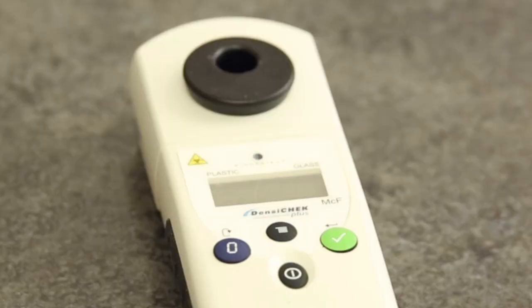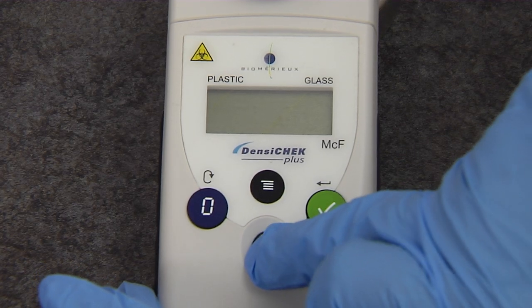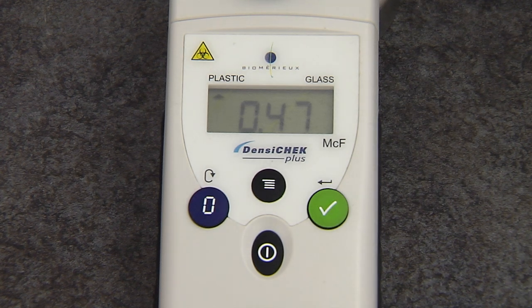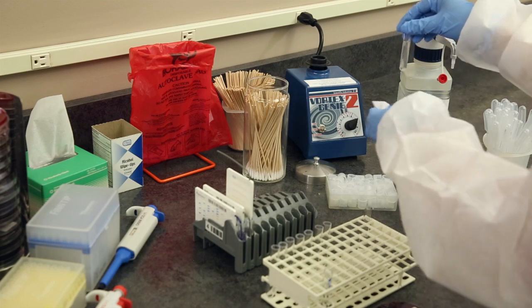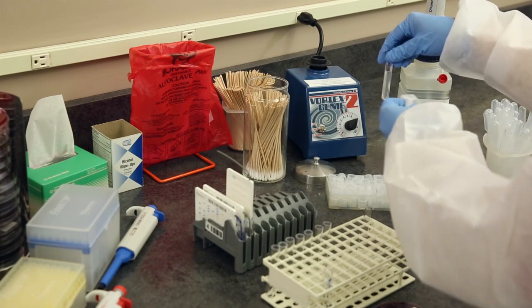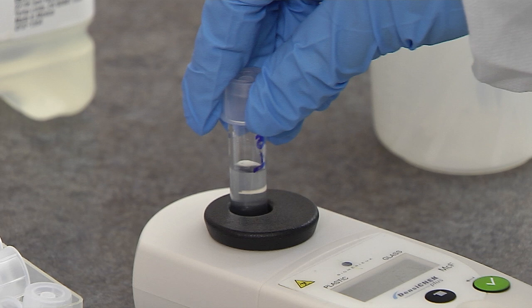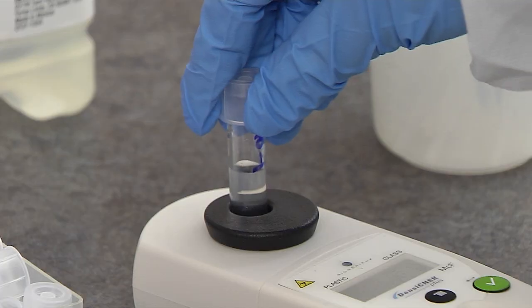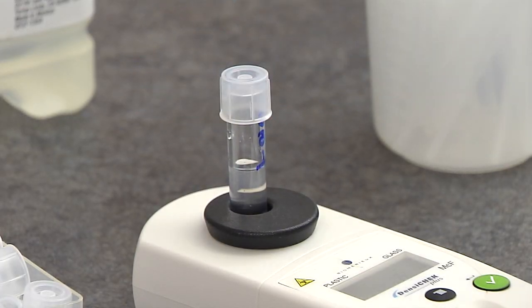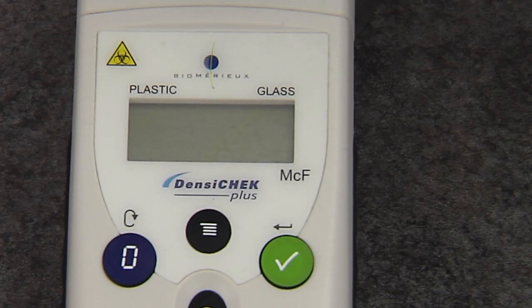Using the DensiCheck Plus, verify an inoculum density equivalent to the McFarland units required by the AST card. Press the power key to turn on the DensiCheck Plus. Verify the tube type is set to plastic. Clean the outside of the tube with lint-free tissue or lens paper. Insert the tube containing the organism suspension into the DensiCheck Plus, ensuring that it is seated at the bottom. The DensiCheck Plus displays a series of dashes. Slowly rotate the tube one complete revolution, 360 degrees, before the reading is displayed.